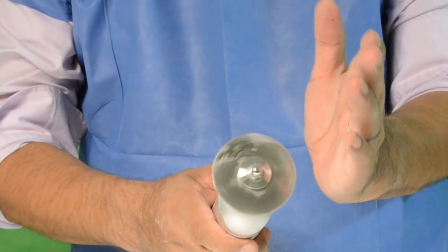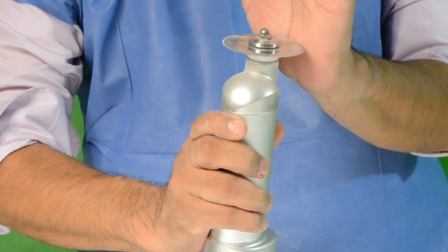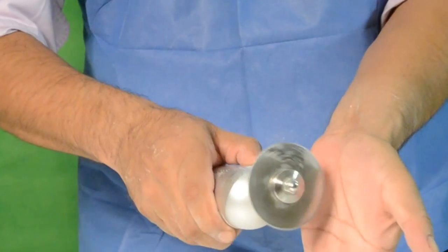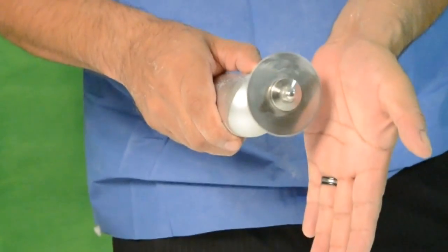The saw has an oscillatory motion thereby decreasing the possibility of cutting the patient's skin when using the plaster apparatus.